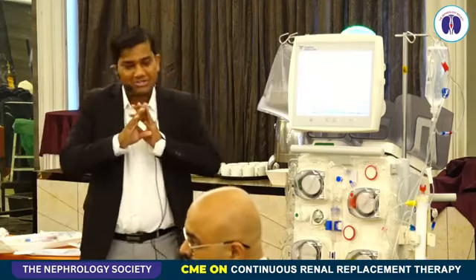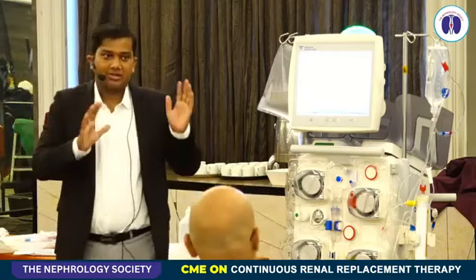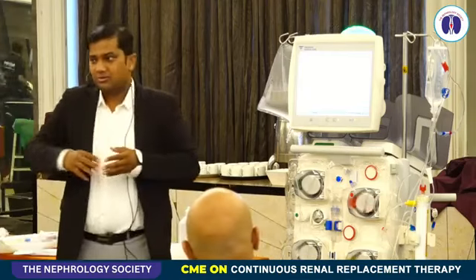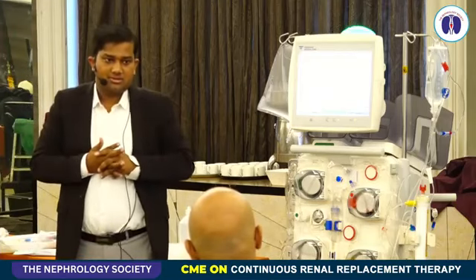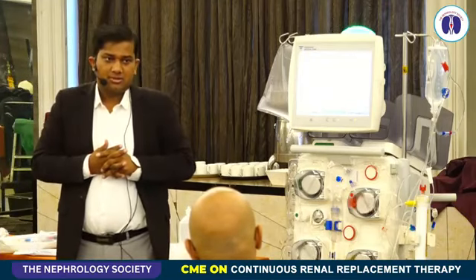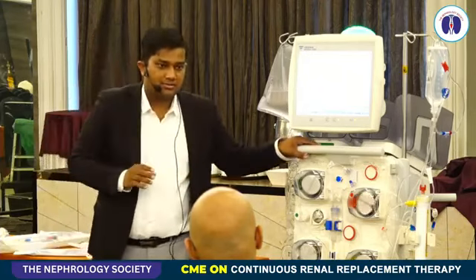No, not in any machine, ma'am. No machine has been made in a way that it automatically measures. We have to send the test to the biochemist, then we'll be able to check it. The machine will not check anything.